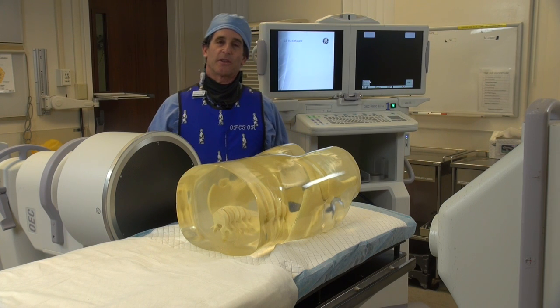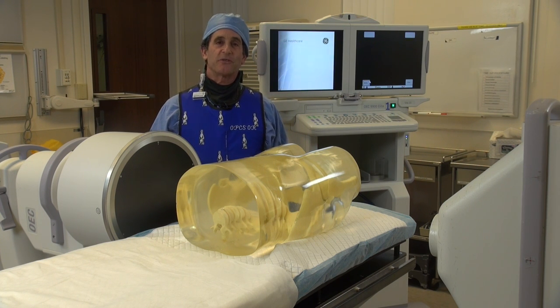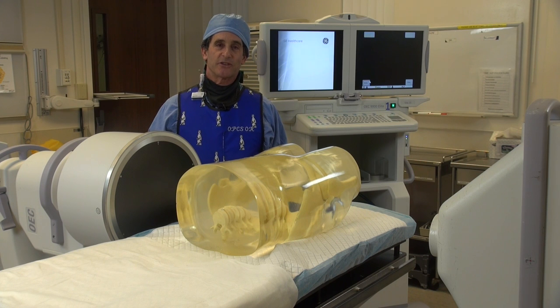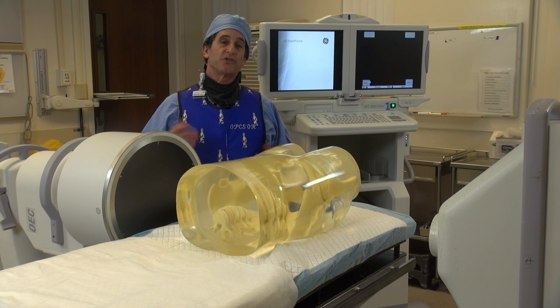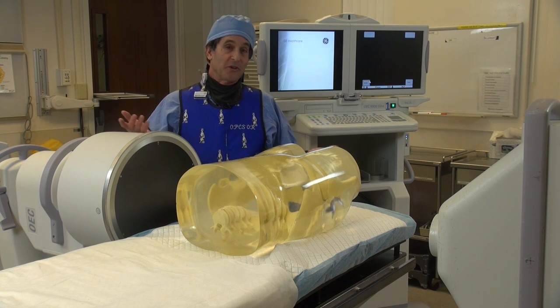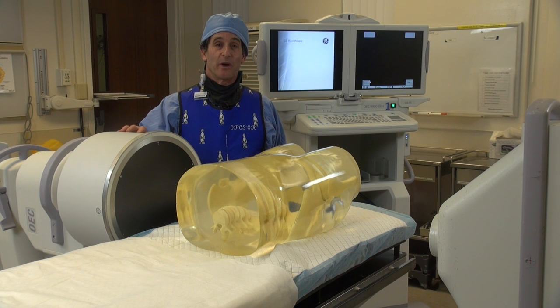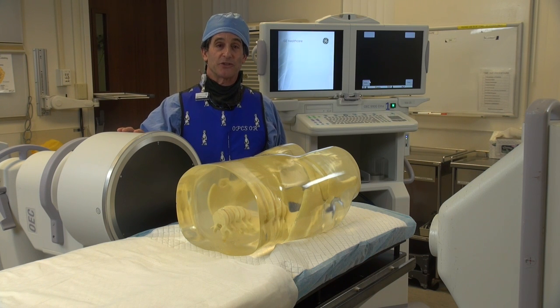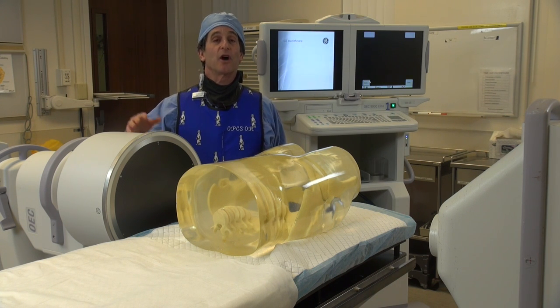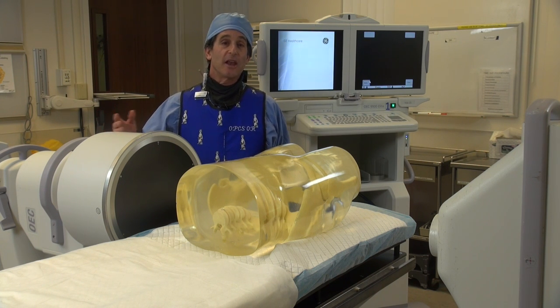Now we're going to discuss the low-dose versus default settings. Generally, everybody's always using default settings, but when you really want to save dose, then you want to go to that low-dose setting.